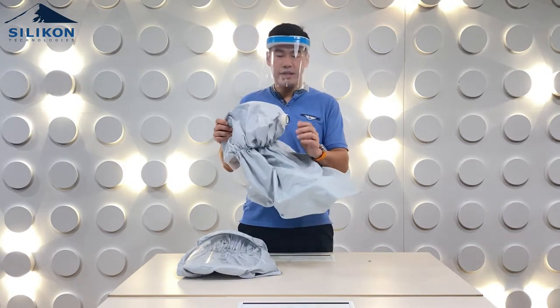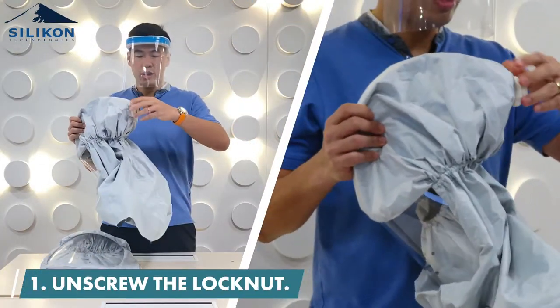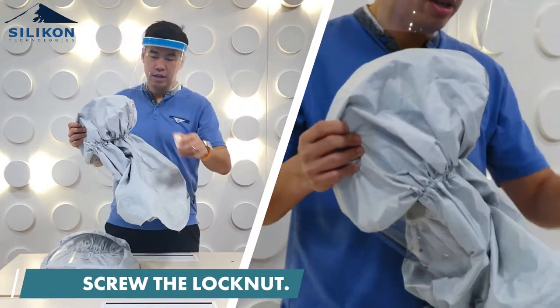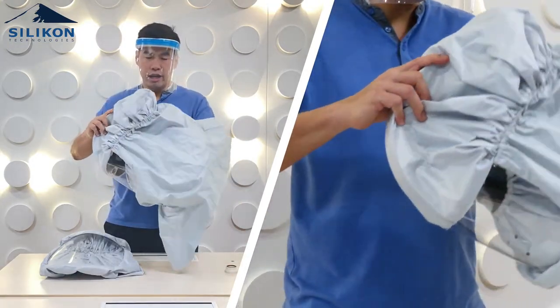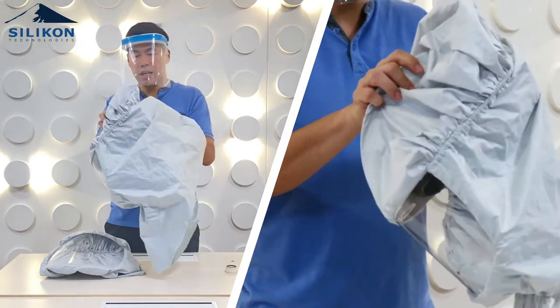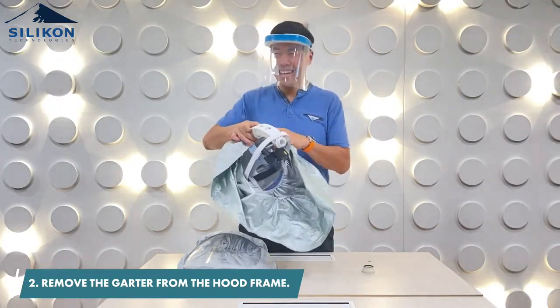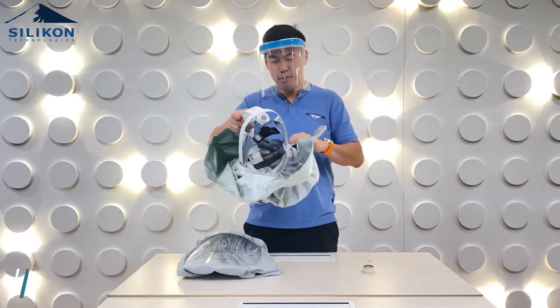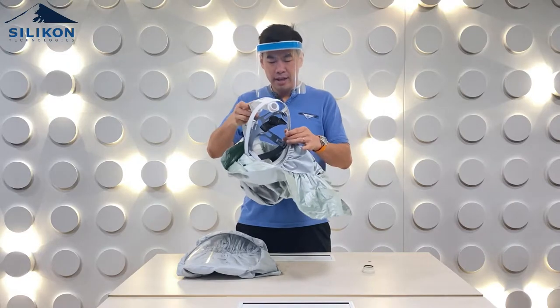The first thing you have to do to remove the hood is unscrew the lock nut at the back. Once you unscrew that, you can remove it from there. There's also a garter — you have to make sure the garter is removed from the hood frame so that you expose the hood frame.